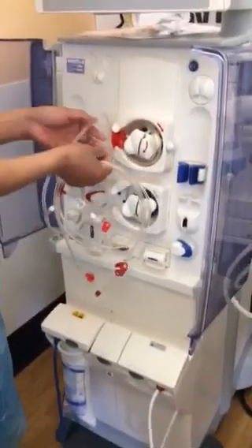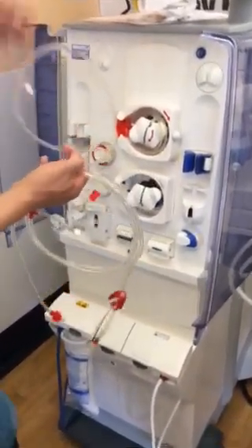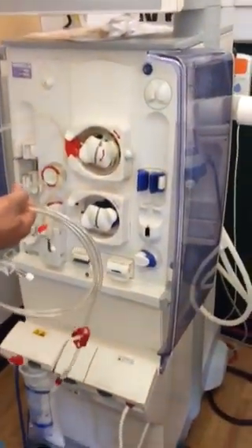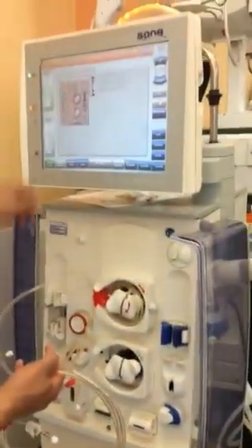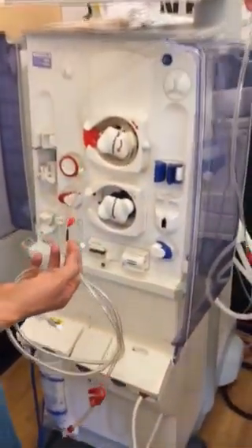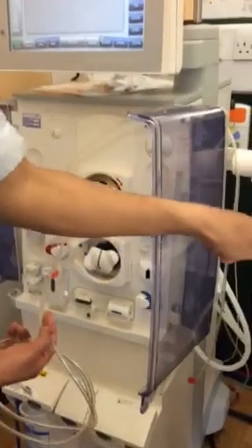Okay, you hear that? Then you can see it shows here where you're going to put it. You see the diagram? So just this one, just hang it like that, so that you know that one will go there.